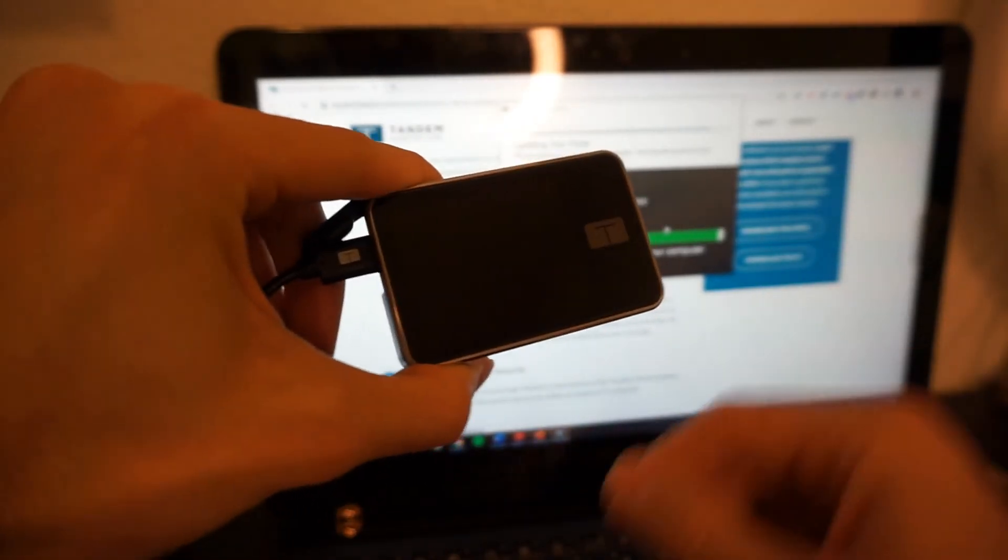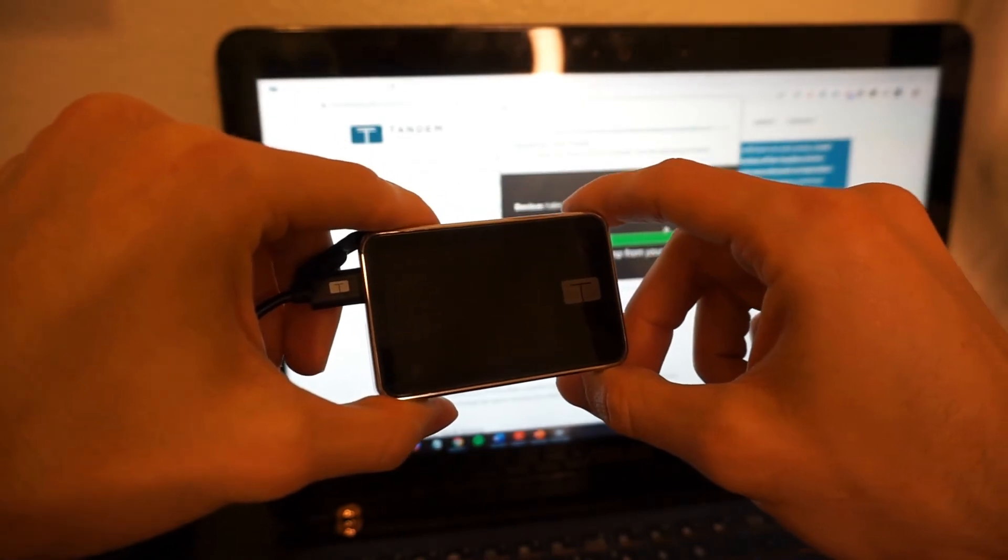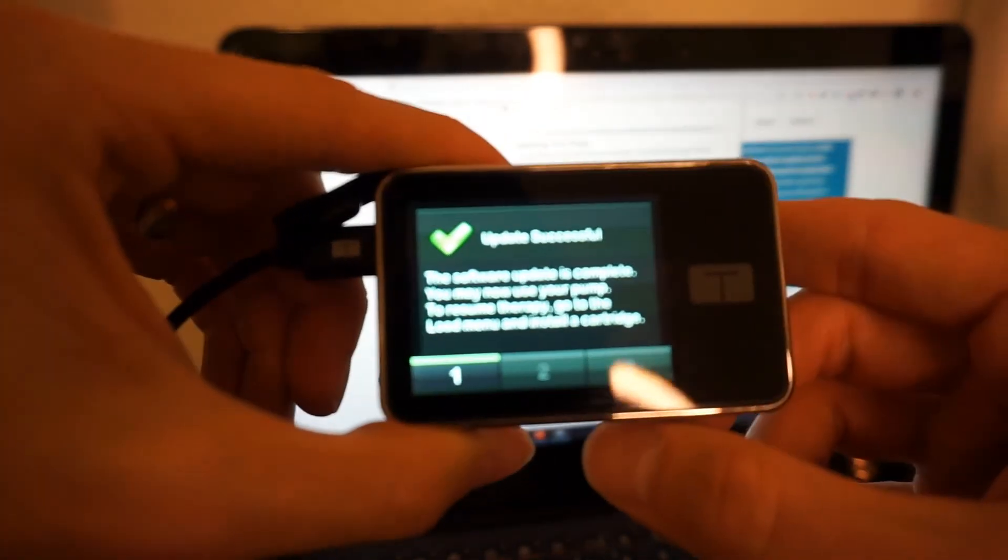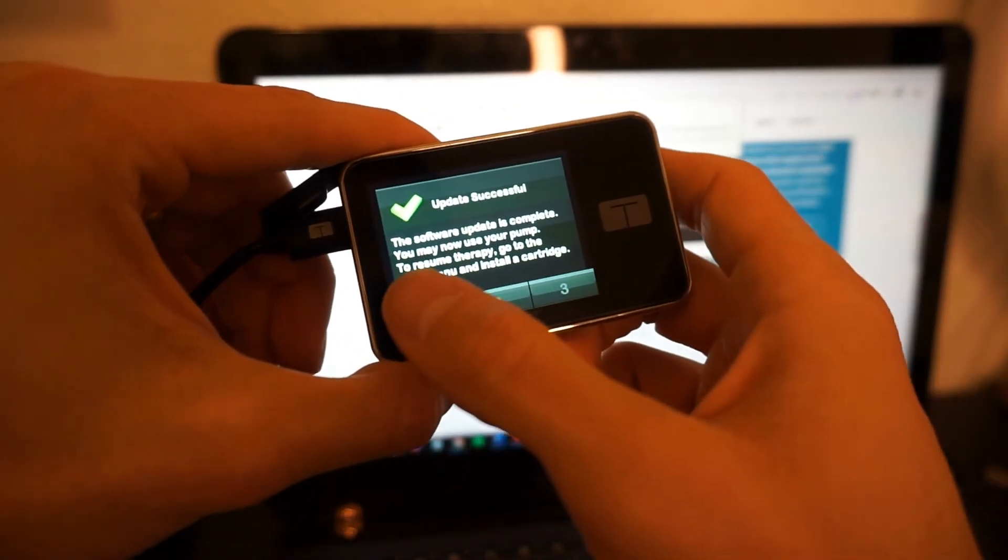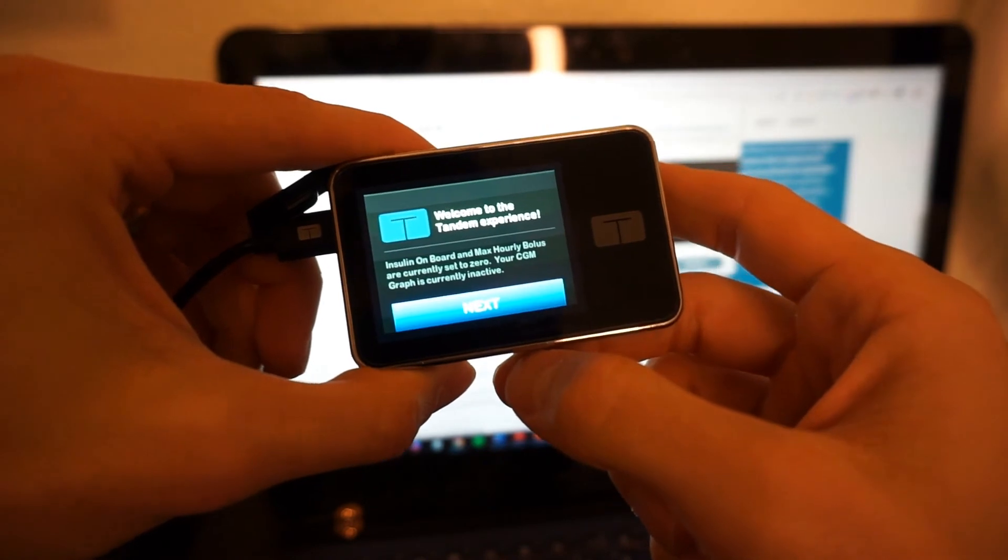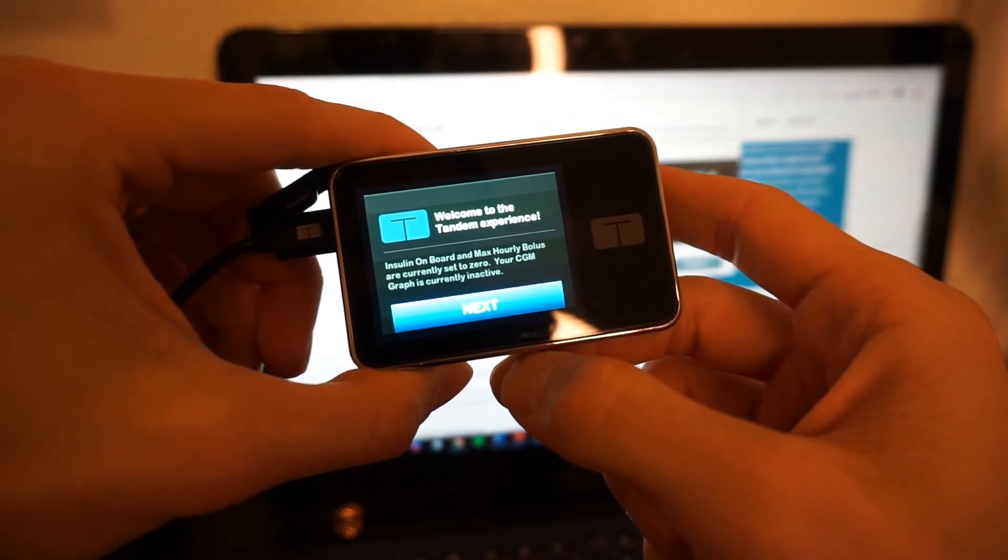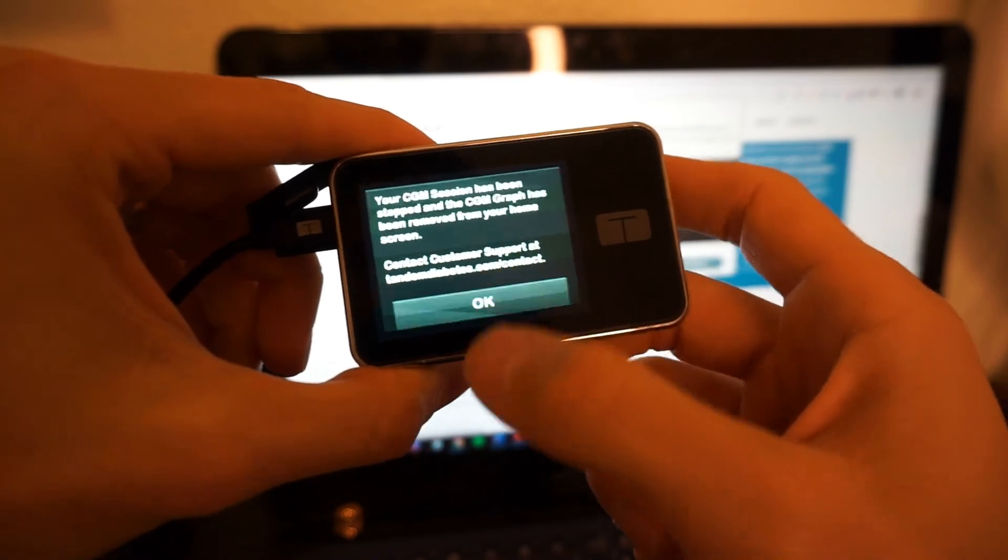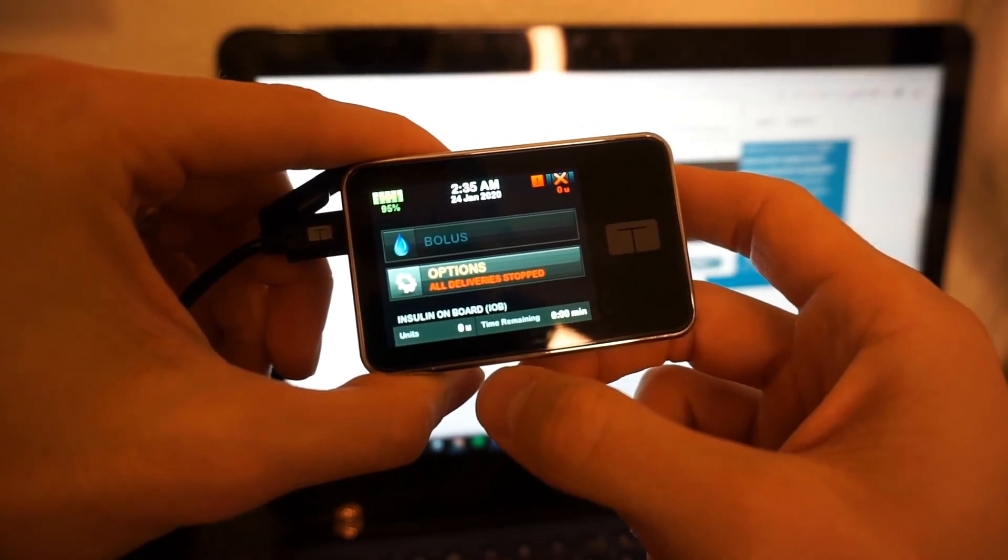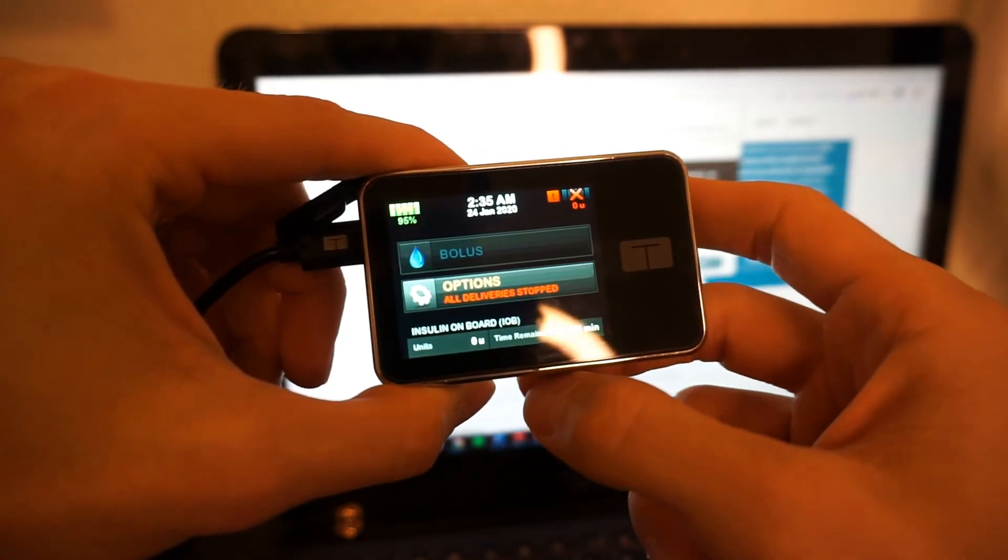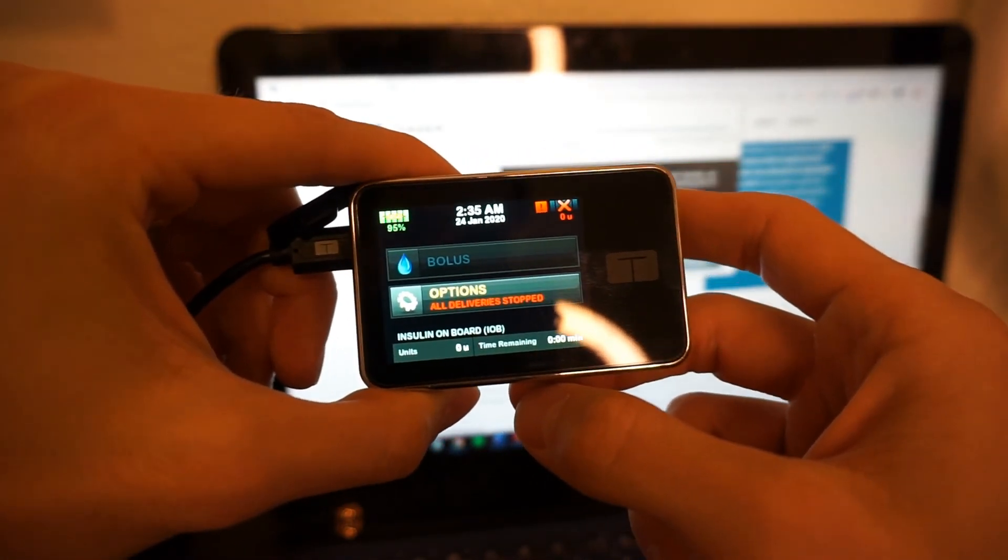Oh, baby. That's a lot of beeps. What does that mean? Oh, update successful. Check that out. Install a cartridge. Welcome to the tandem experience. CGM has to be reset. Boom. There we go. We have officially... Oh, that time is way off. 2:35 in the morning. I am not that crazy. It's 10:40.